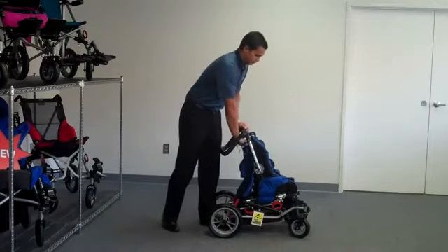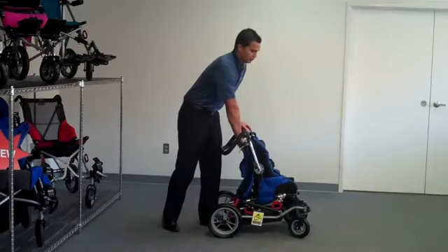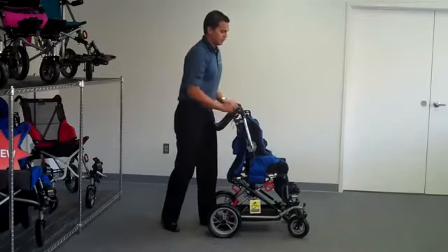To get your chair back to its highest position, simply pull on your high-low lever and the chair does it itself.